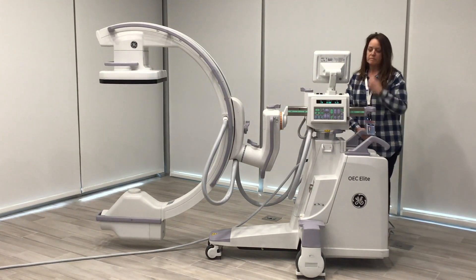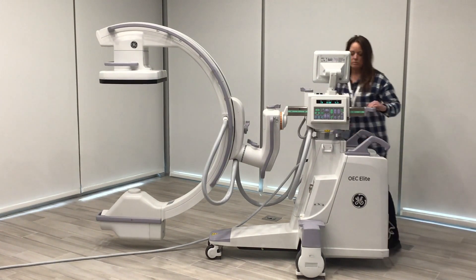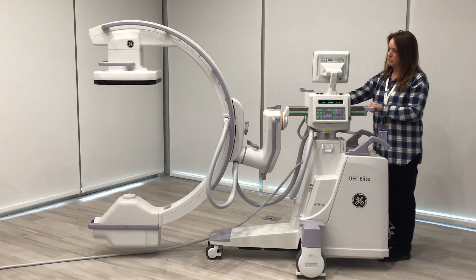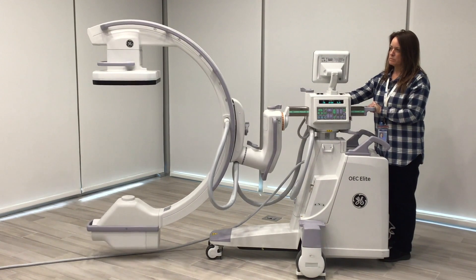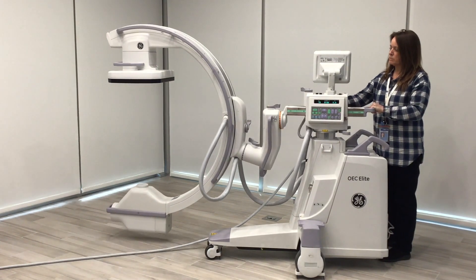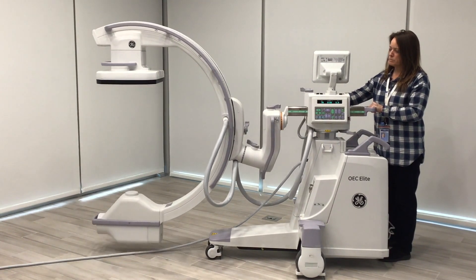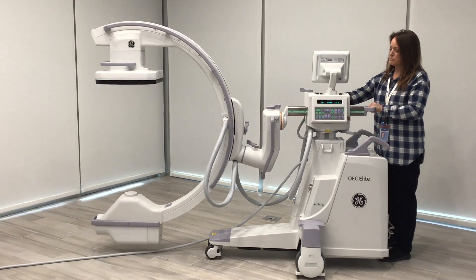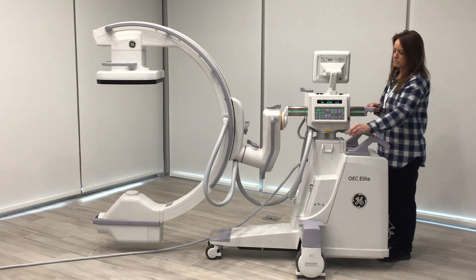From there we move to what we call the wigwag lock or pivot lock. You have 10 degrees of rotation in either direction. The C-Arm rotates in a pivot axis form as an arc. Be very careful when positioning using this lock because it moves really easily and it moves two directions at one time.